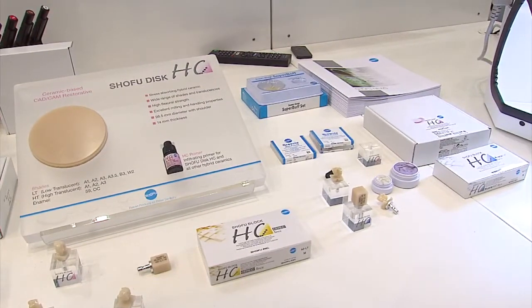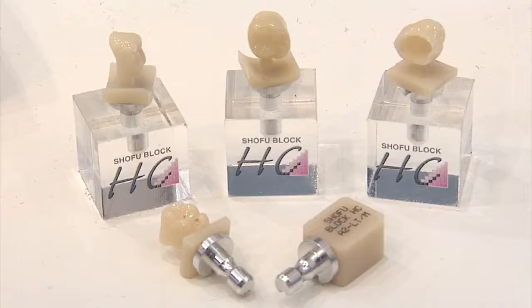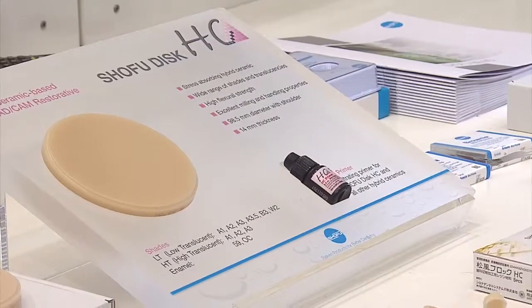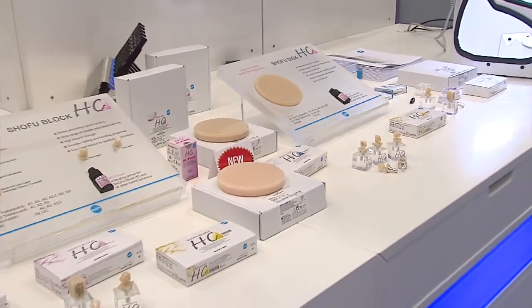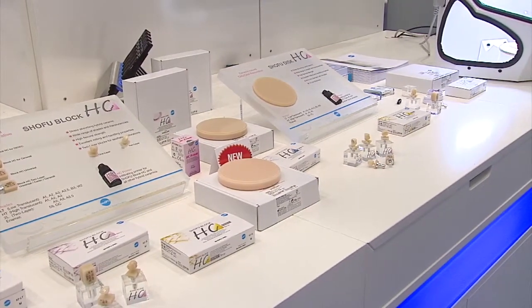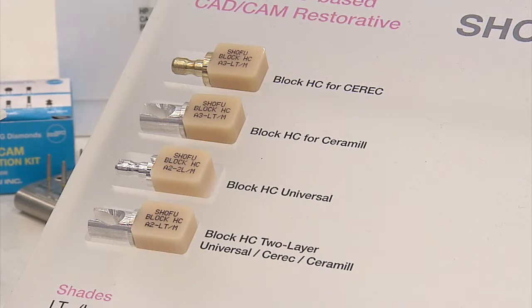The physical strength of this material is 190 MPa. You can use it on implant-supported restorations as well as for posterior and aesthetic anterior restorations.